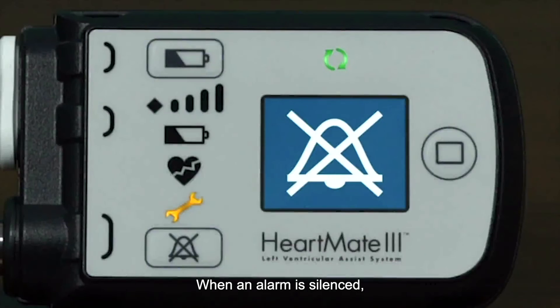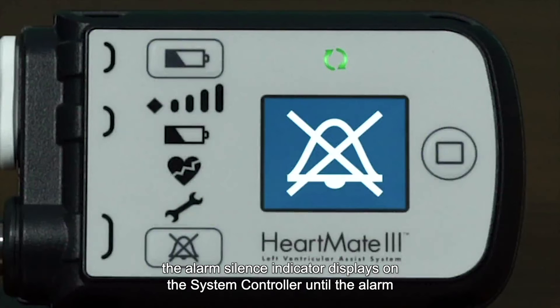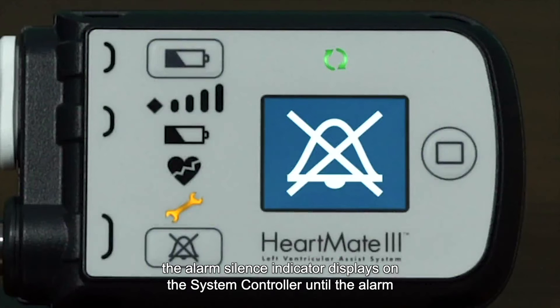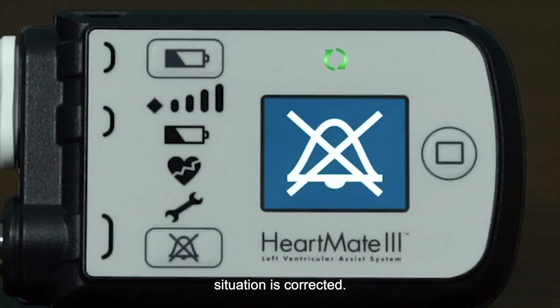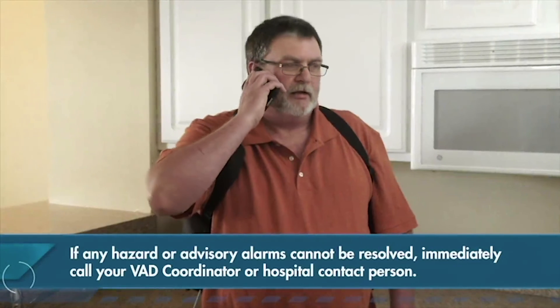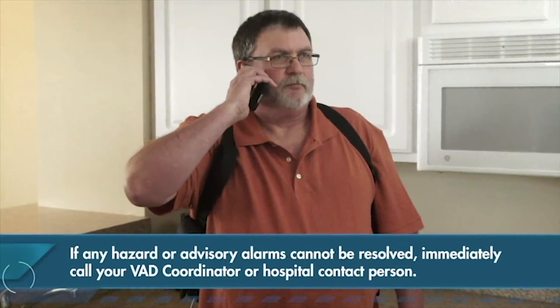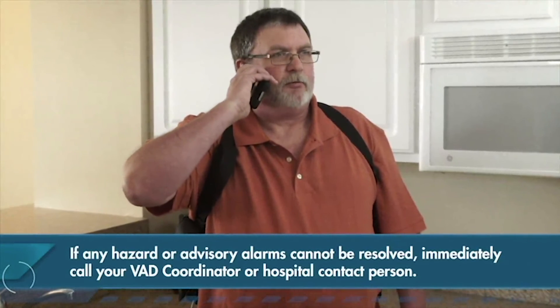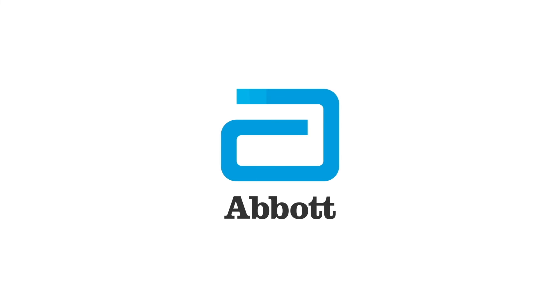When an alarm is silenced, the alarm silence indicator displays on the system controller until the alarm situation is corrected. If any hazard or advisory alarms cannot be resolved, immediately call your VAD coordinator or hospital contact person.